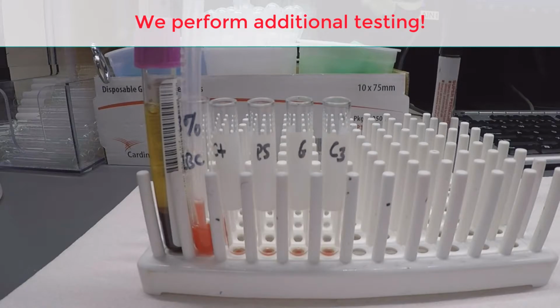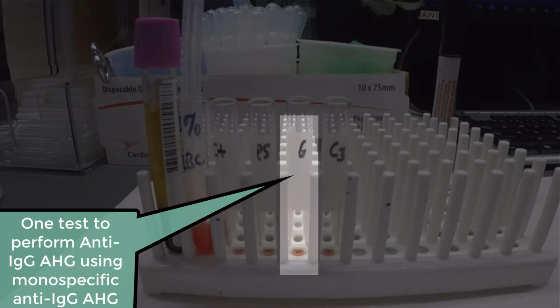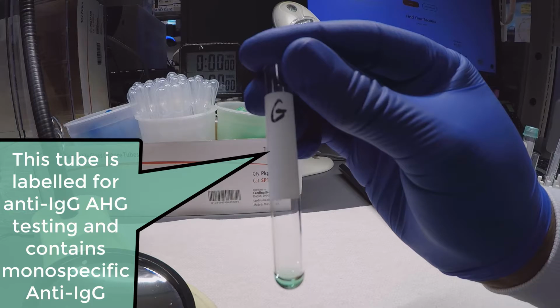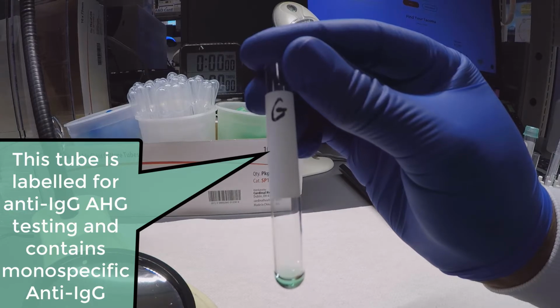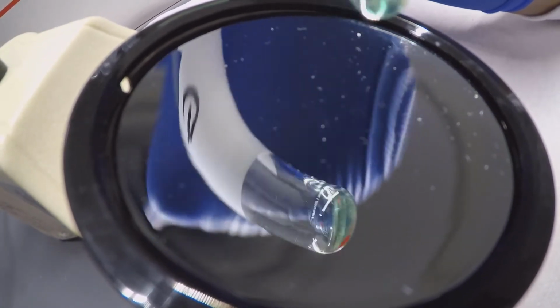With a valid saline control coupled with a reactive polyspecific result, it is necessary to complete the DAT with the monospecific reagents anti-human IgG and anti-human complement. 2 drops of each reagent are added to the appropriately labeled tube, centrifuged, and read under the optical aid. Non-reactive tubes are followed up with a microscopic reading.